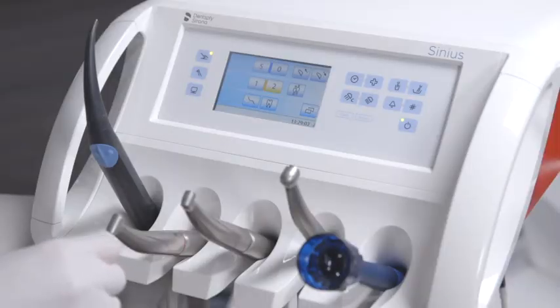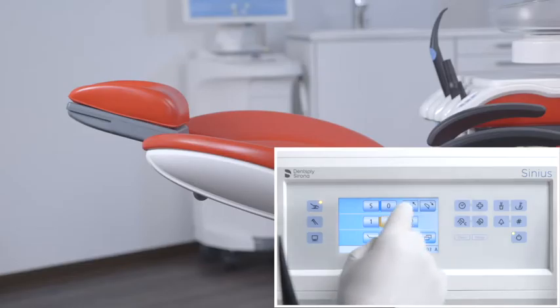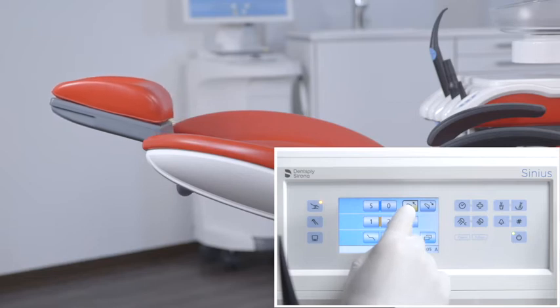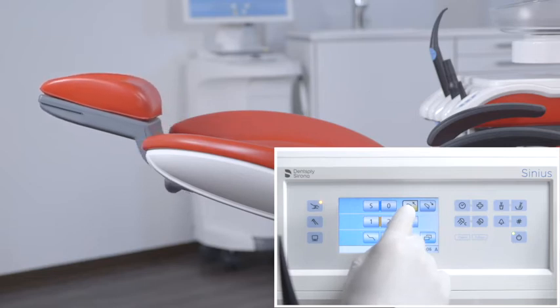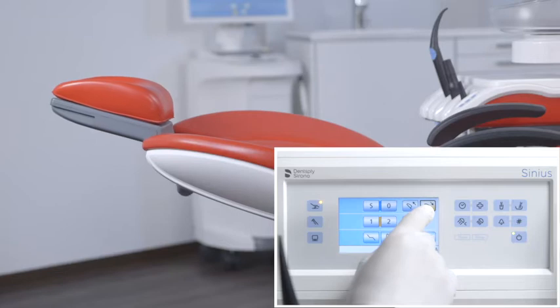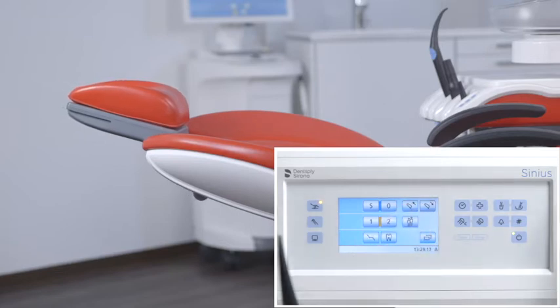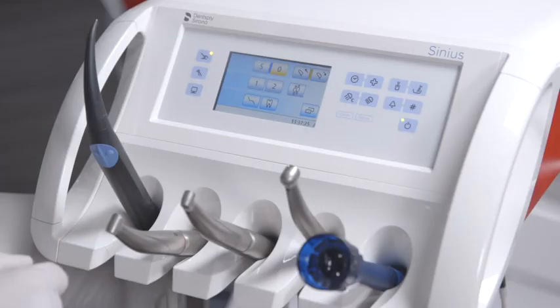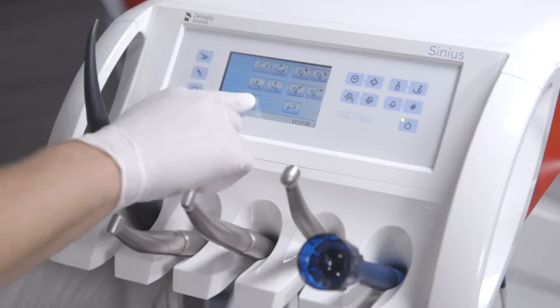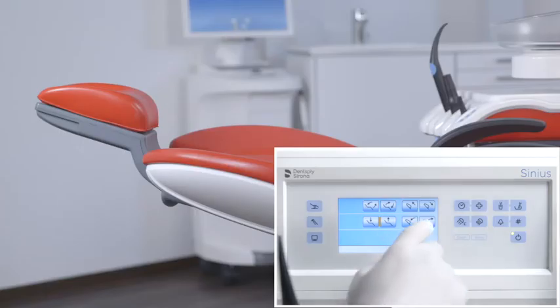With the move headrest in and move headrest out buttons, the headrest is moved to the correct height. With the headrest buttons in the sub-screen, the headrest can also be tilted or extended.